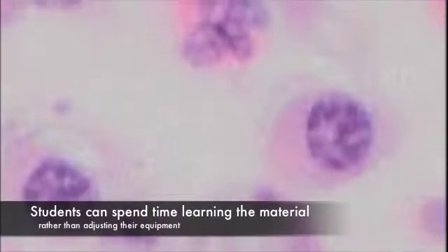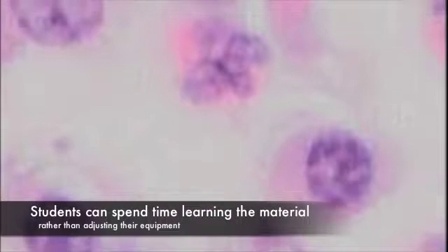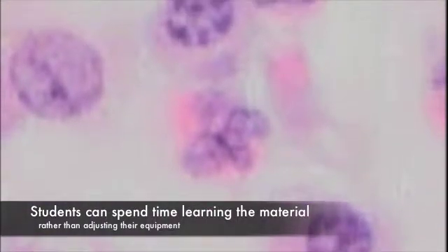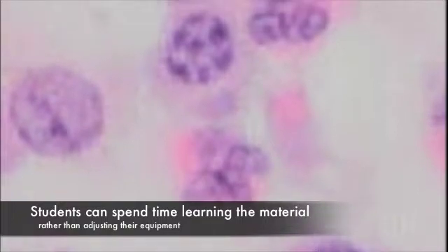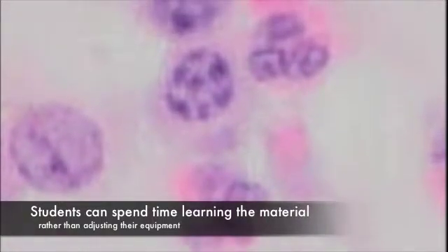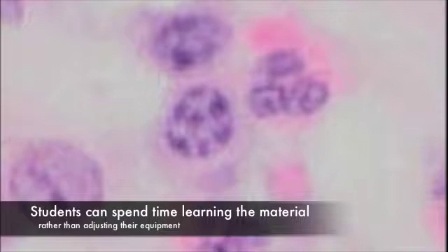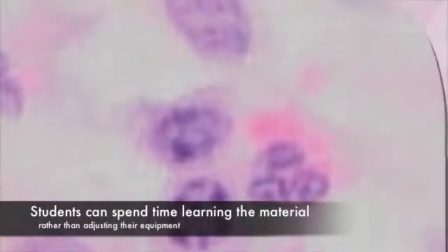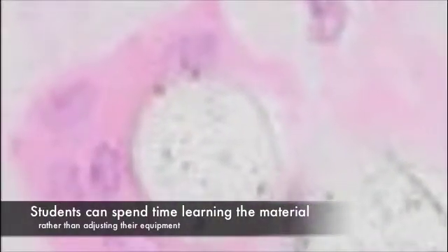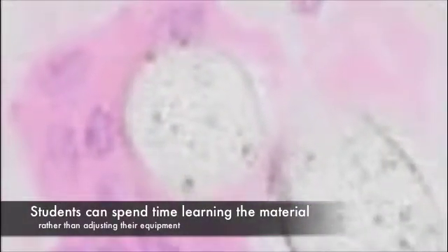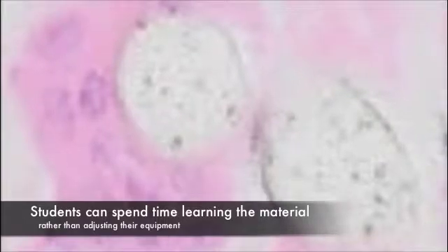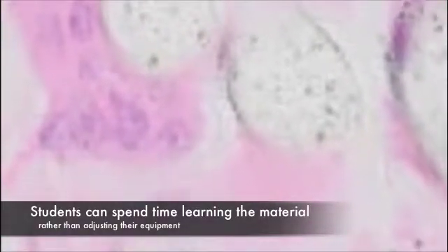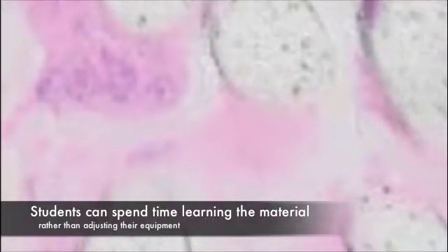As a former pharmacology student having done microbiology, I really appreciate the way that all the students are looking at the same sample so you can focus on actually gaining the knowledge rather than messing around with the equipment. Some students will use a microscope later on when they are a professional, but most of them don't. So when they have to adjust the illumination, that's really a pain for most of the students.